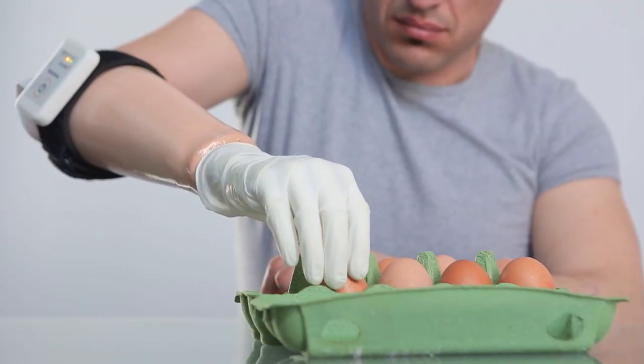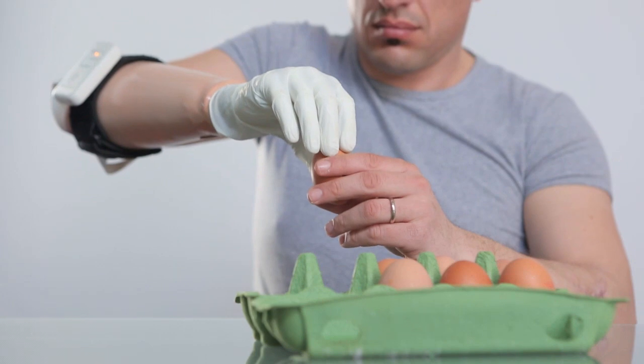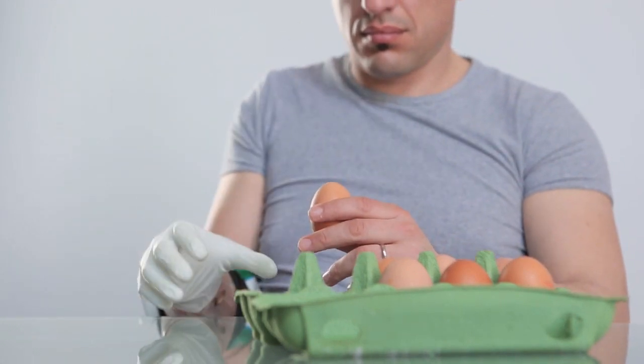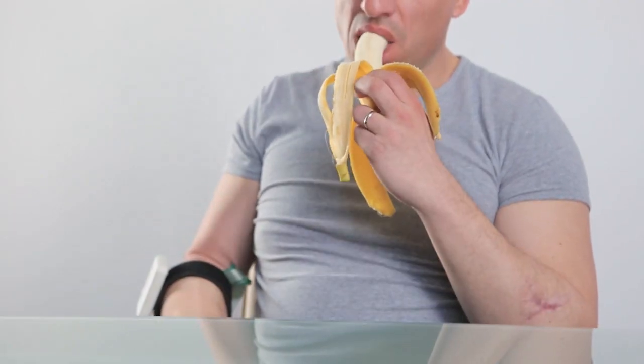The MaxHand's electro-tactile feedback interface is an innovative step towards a new generation of hand prostheses perceived by wearers as a part of their own body.